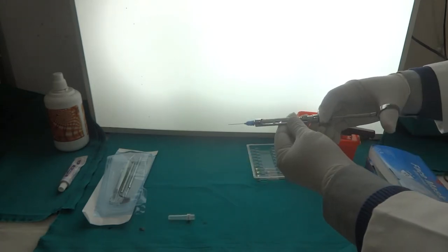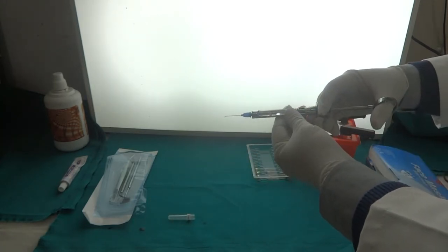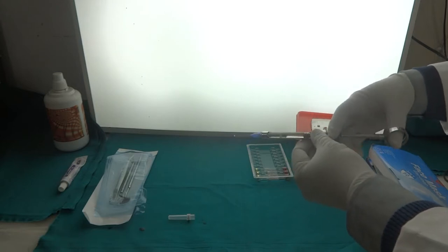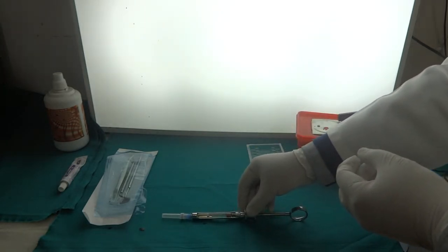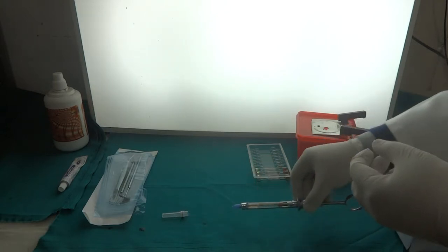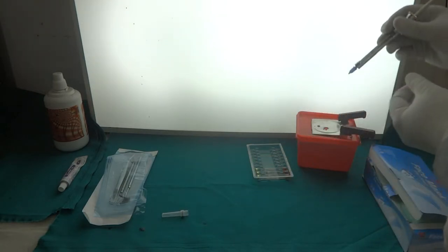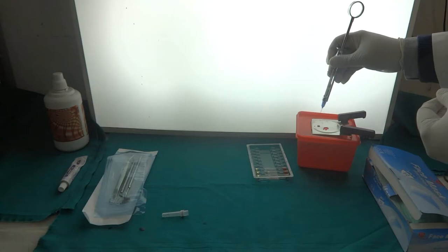Now we are checking whether the dental syringe is ready for local anesthesia administration, and now we are resheathing the needle for safer use. Now we are going to demonstrate how we discard the dental needle to prevent needle stick injury.